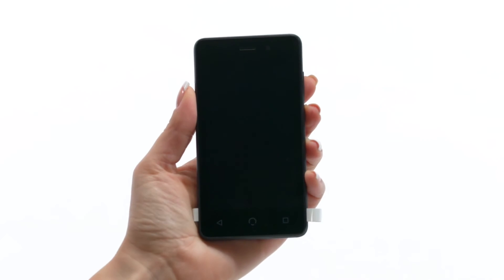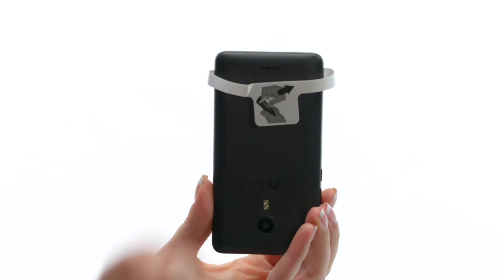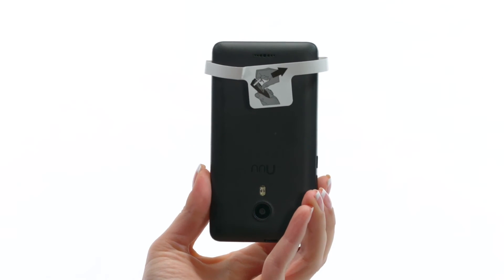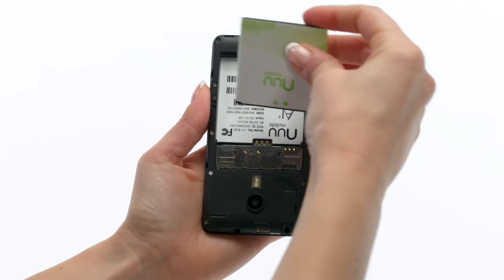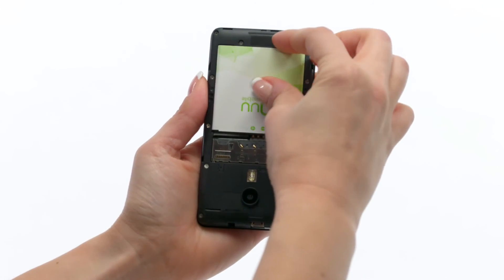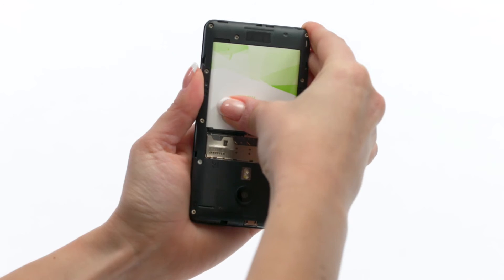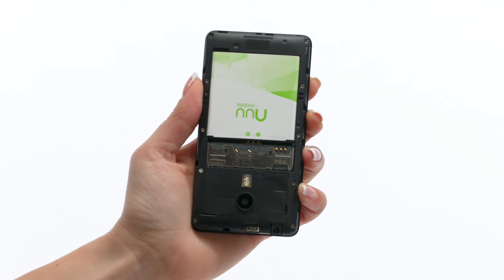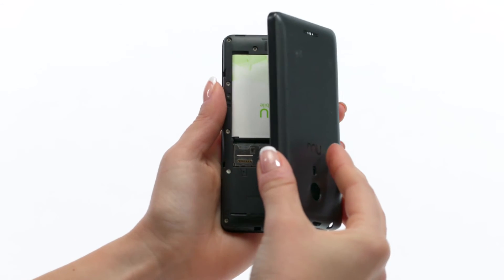To set up the PDM, first insert the battery that's included in the starter kit. Turn the PDM over and use the attached pull tab to remove the PDM's back cover. Insert the new battery and snap the back cover into place.